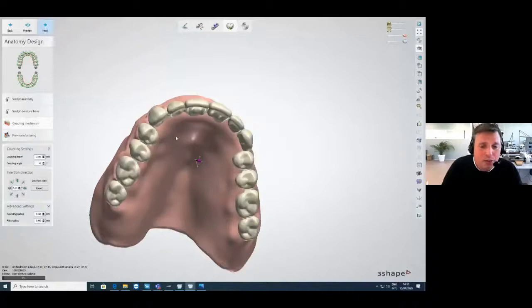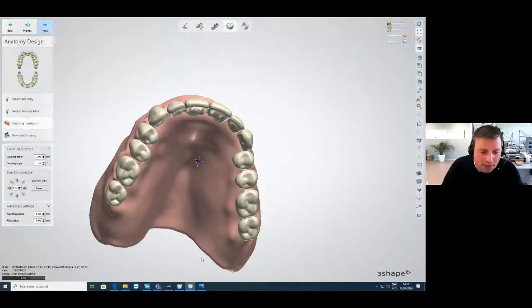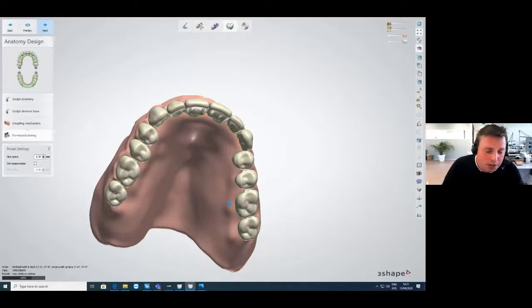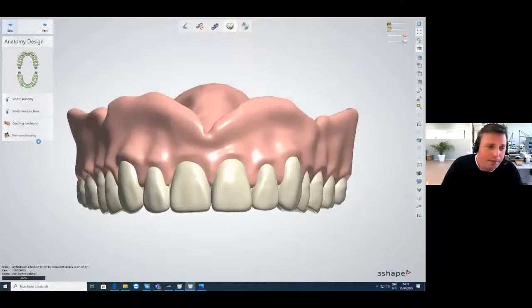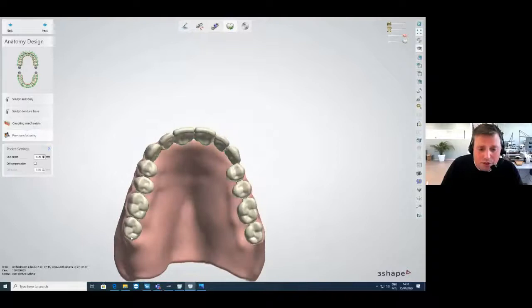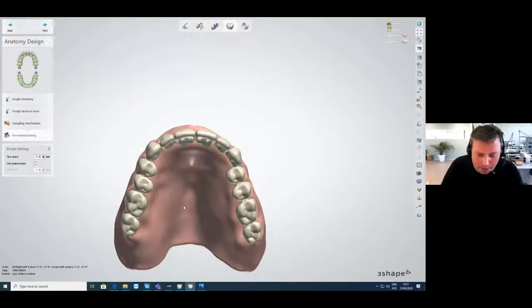Hitting next takes you to the coupling mechanism step, which creates a perfect arch on the basal side and makes it easier to cut out in the gingiva part. After calculation, the software generates two separate STL files: a separate base STL and a separate teeth arch STL — with the 0.2 mm glue space. These can be printed directly in 3D Sprint.